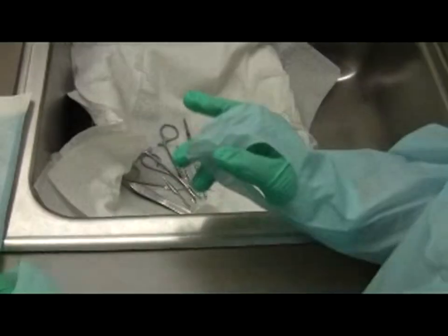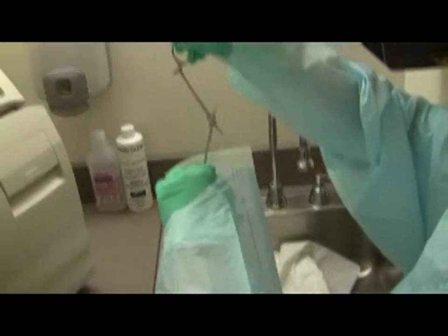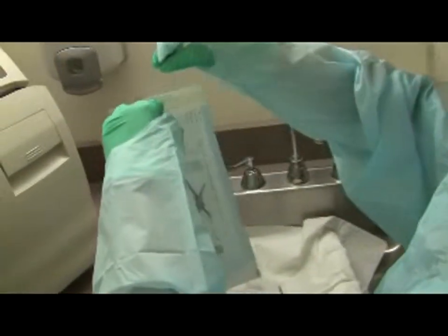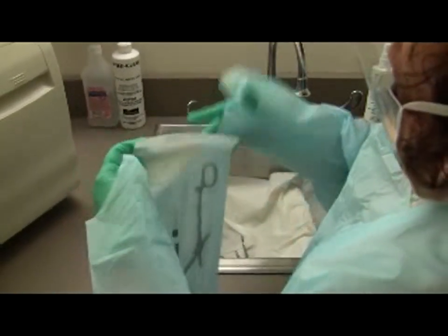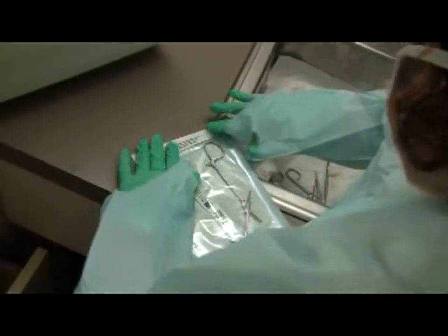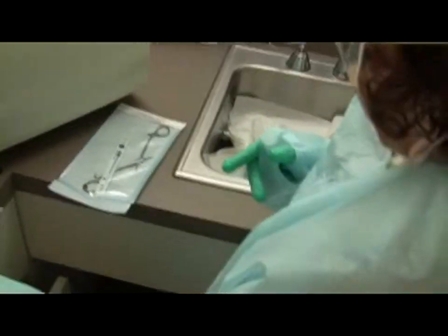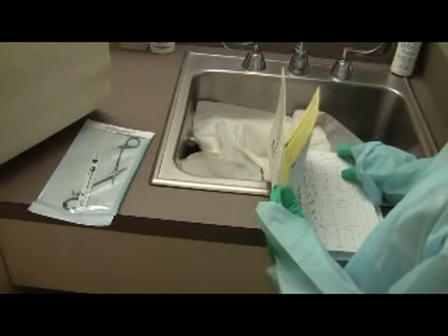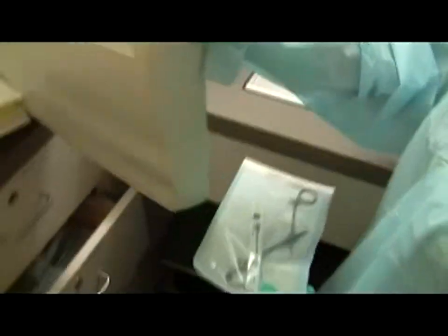Now put instruments separately in each pouch. Instruments with joints should be placed in the open position in the pouch — one instrument per pouch. Pull the tape and fold it over to seal. Count the instruments while washing or while pouching. The autoclave can accommodate approximately 70 instruments before you need to do a second run.